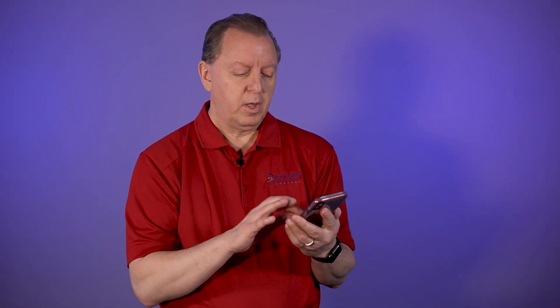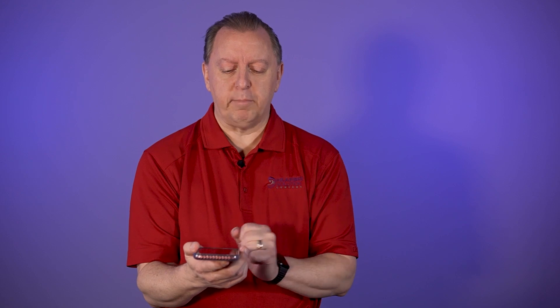I've been doing this for 29 years and I've worn hearing aids for the last nine years because I have a mild to moderate hearing loss. Here's what I do: when I walk into a restaurant, I set my phone down with the app up and listen to the world. Give yourself about 15 seconds so the hearing aids can analyze exactly what's going on. Then swipe over into Restaurant Mode — it'll go bing bing — and then I know what it sounds like. If there's a little noise, I might turn on the noise filter, and if I still can't hear clearly, I pop it into Speech Focus mode.